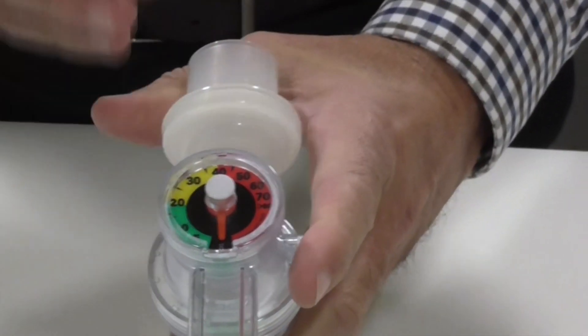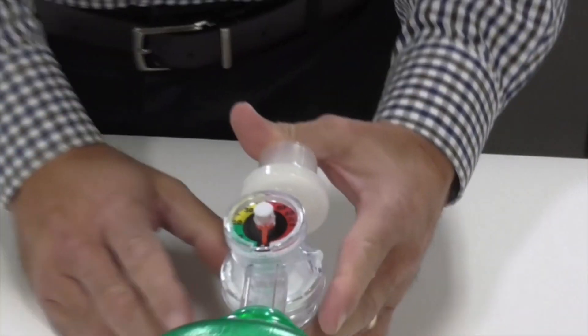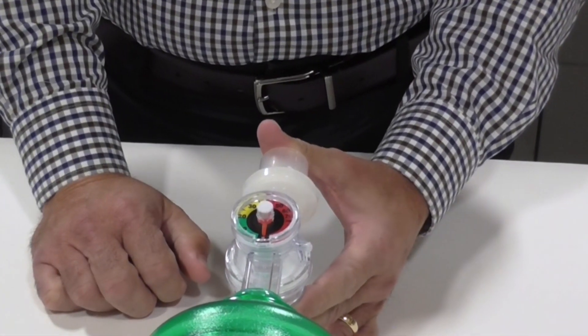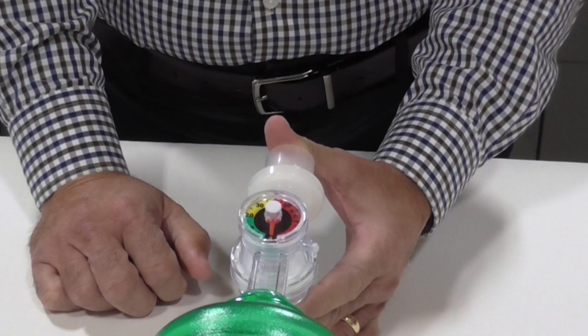So integrated manometer. Very important to have a manometer whether using a pediatric or infant bag. We put these on our adult bags also.